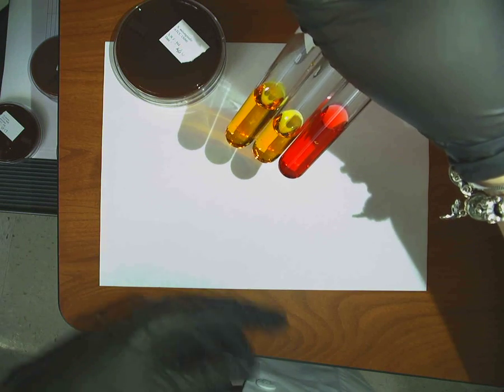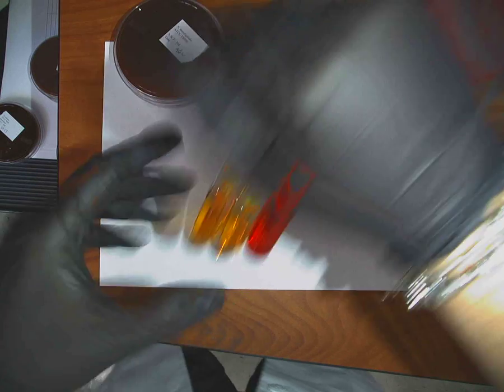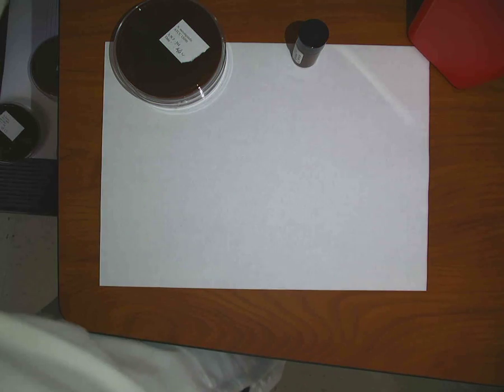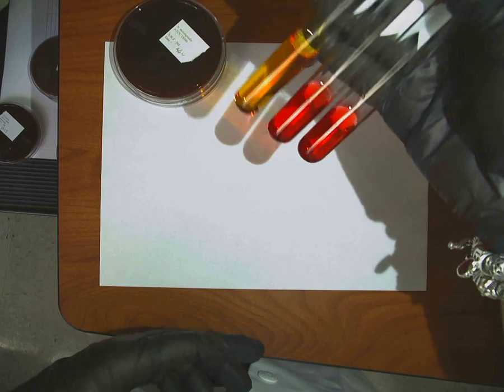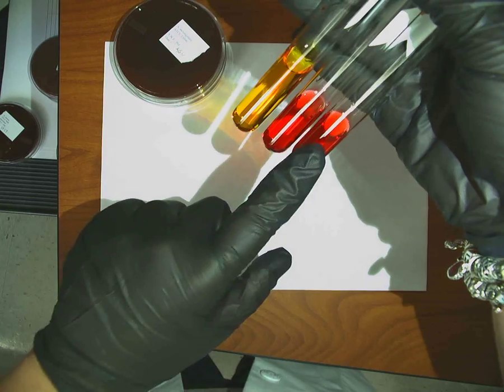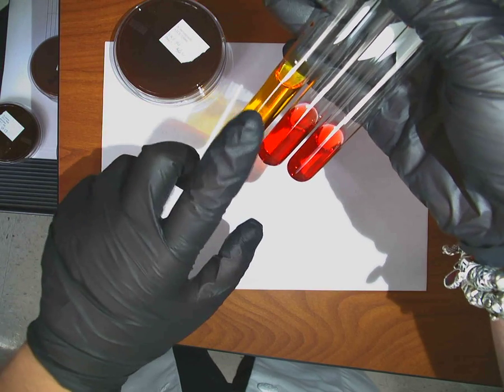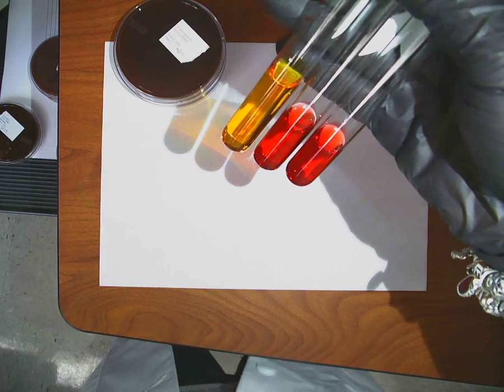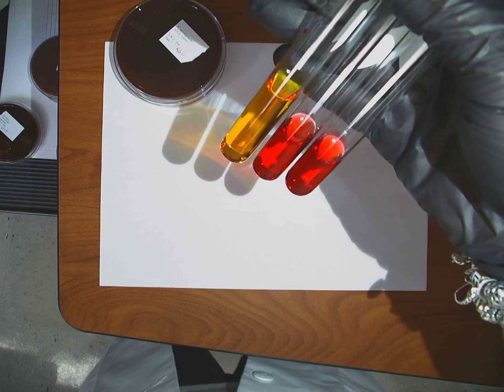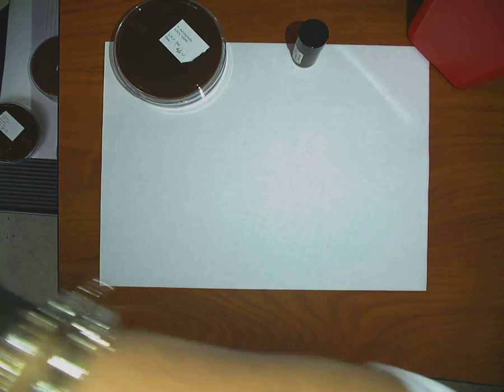So, Neisseria meningitidis ferments glucose and maltose and not sucrose, okay? In comparison to gonorrhoeae, which ferments what? Just glucose. So your gonorrhoeae would be like that. Glucose, maltose, sucrose. So your red is negative, your yellow is positive. Yellow indicates fermentation. Okay? An acid has been produced, and that acid has changed that indicator color. Any questions about this? Okay.